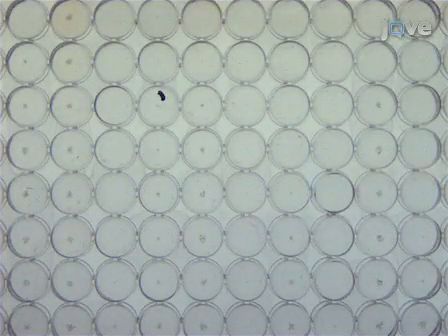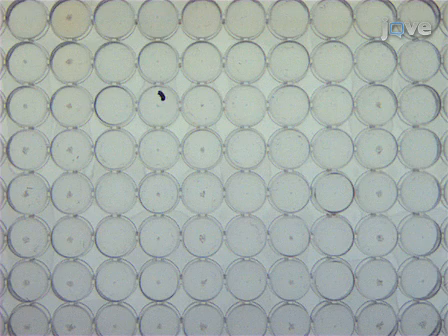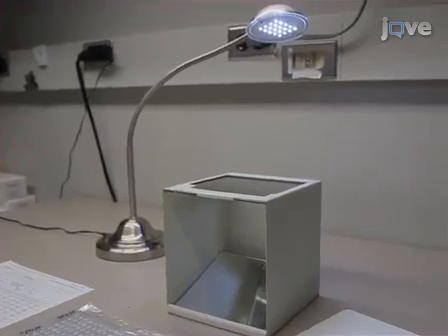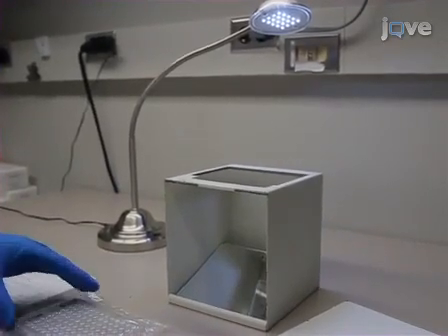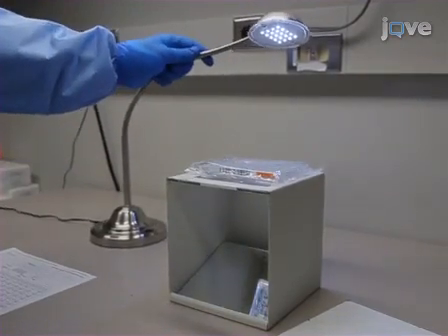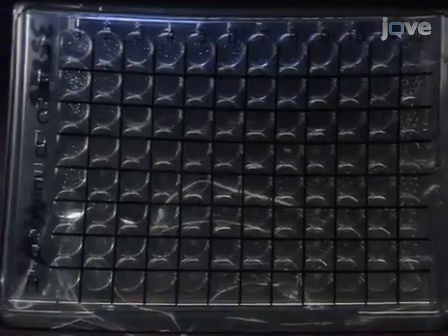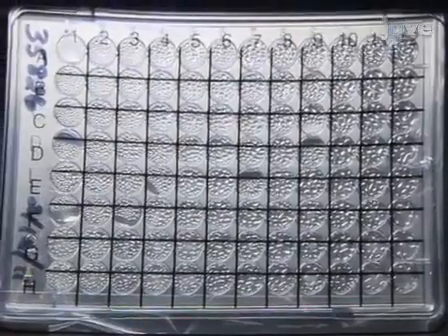Mycobacterium tuberculosis generation time is approximately 12 to 24 hours, so it will be at least a week before growth can be seen as the formation of a cell pellet in the bottom of the control well. On day 10, perform a manual mirror read by placing the sealed AST microtiter plate onto the platform of the mirror box. Use a desk lamp to aid in visualizing the growth. Adjust as needed to get the best contrast.